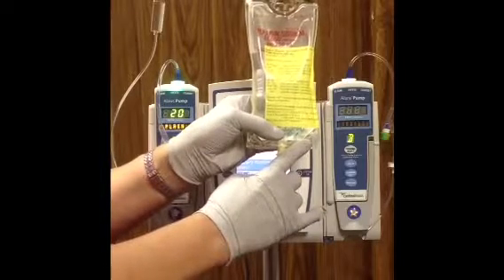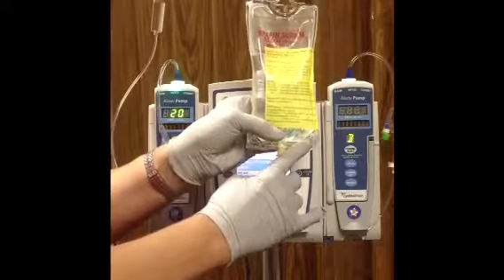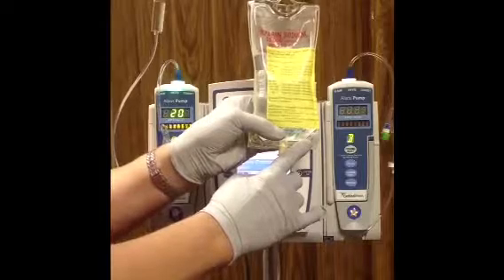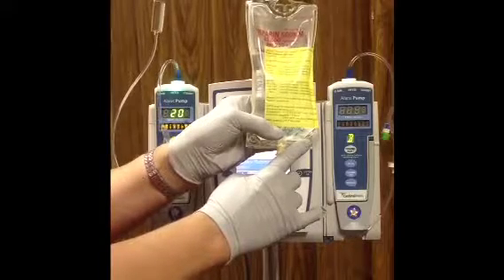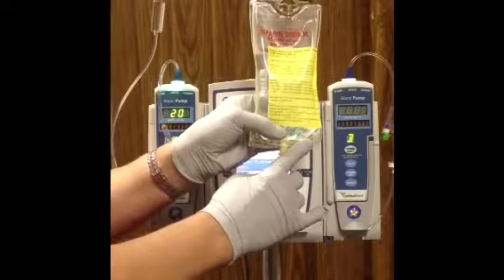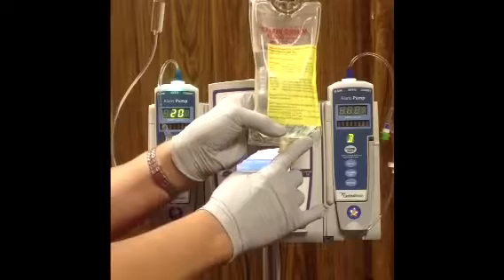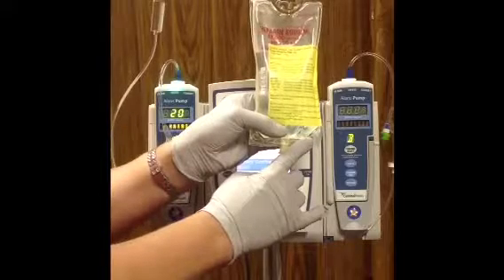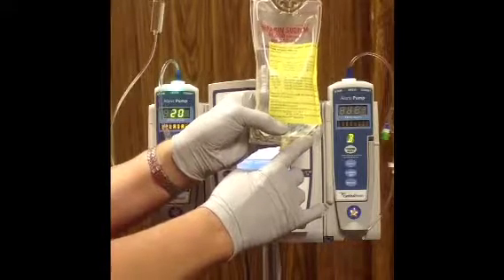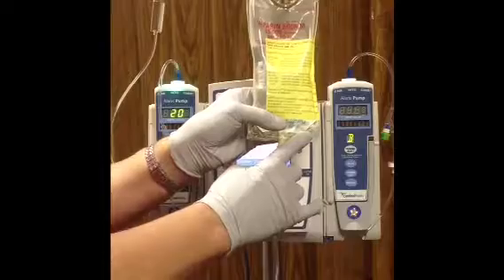There are examples of medications that are mixed in the pharmacy that also have a bolus from the bag function. For example, amiodarone — and we will have a separate barcode on the actual medication label for the bolus from the bag function.